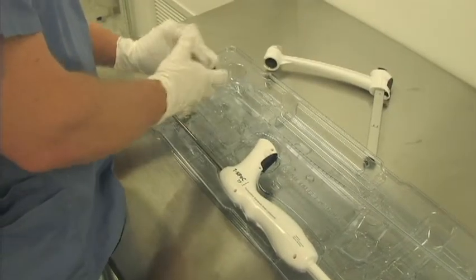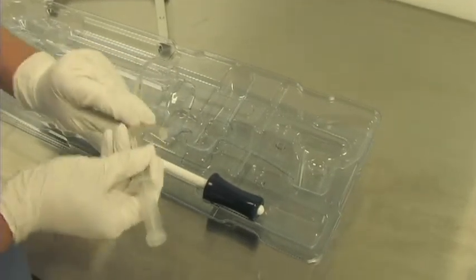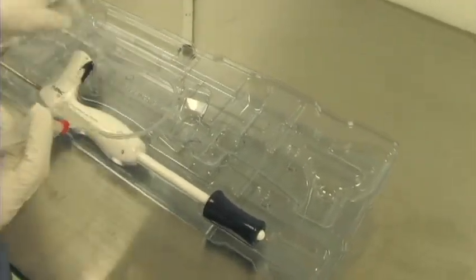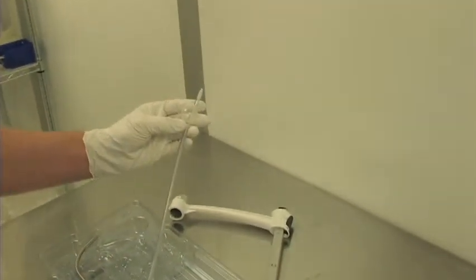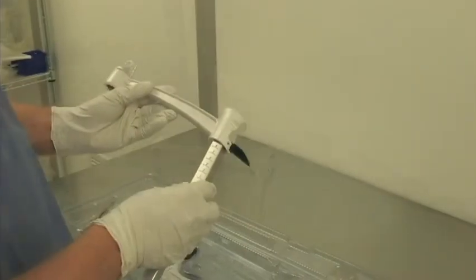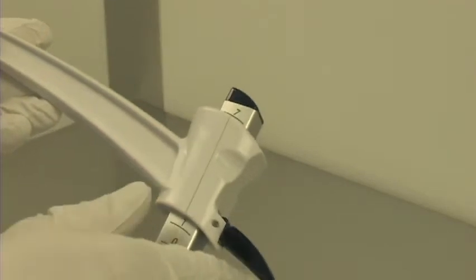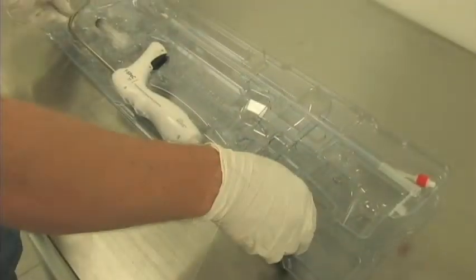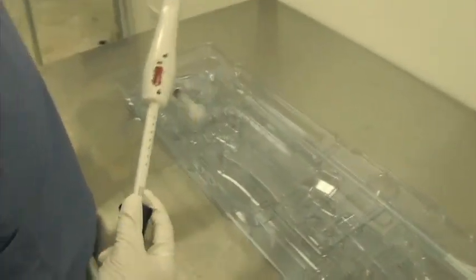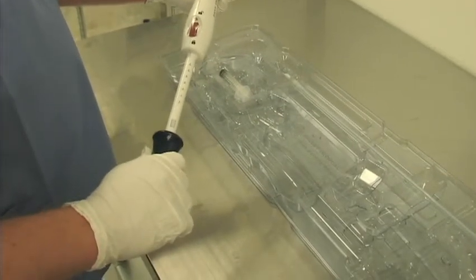Prior to beginning the surgical procedure, fill the syringe with 10 cc's of sterile water. Test the catheter balloon by inflating and deflating it with the syringe and sterile water to confirm function and integrity, then set aside for later use. Install the positioning arm onto the mast at the top incision track measurement and set aside. Ensure that the lock wheel is in the lock position and the rear handle does not slide forward. The lock wheel cover is to remain in place until the physician is ready to initiate the surgical incision.